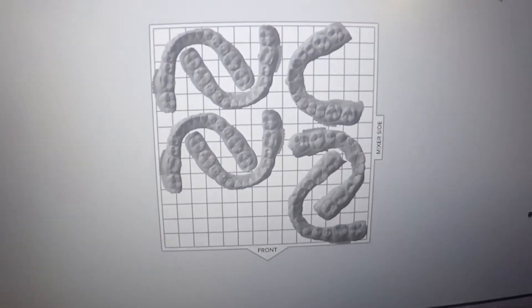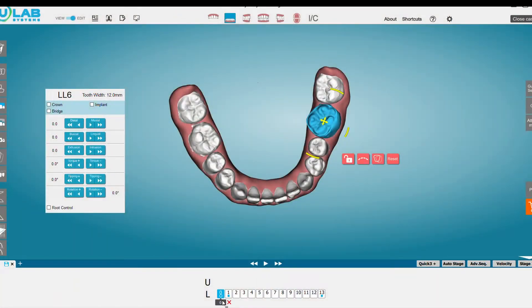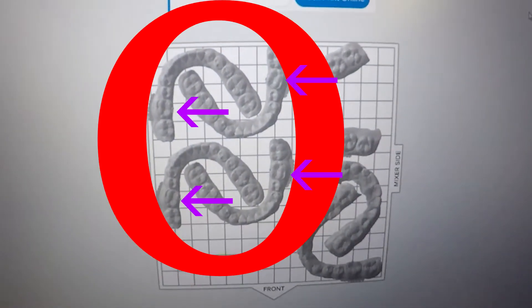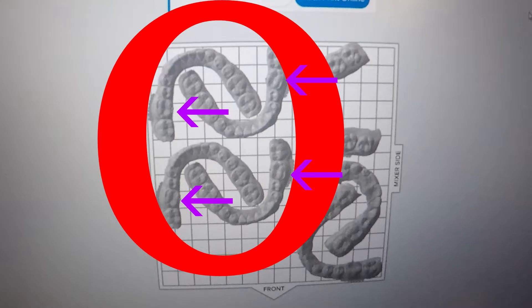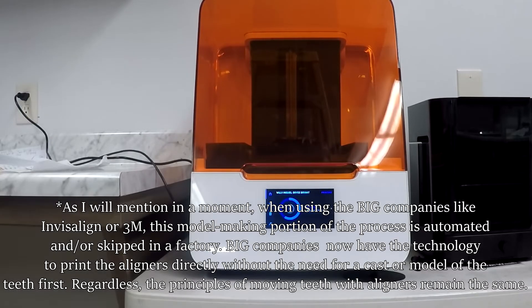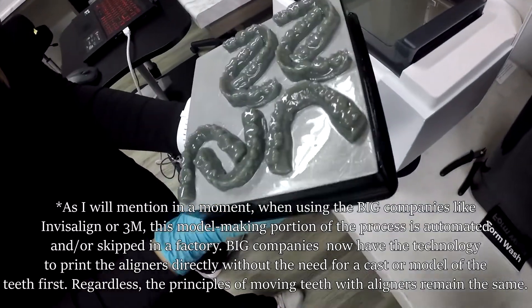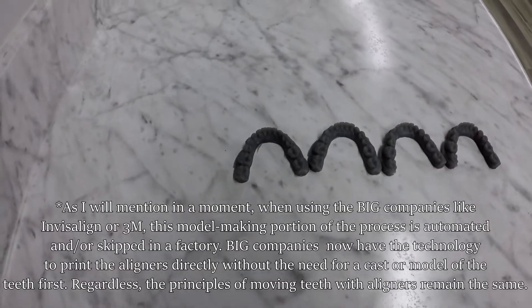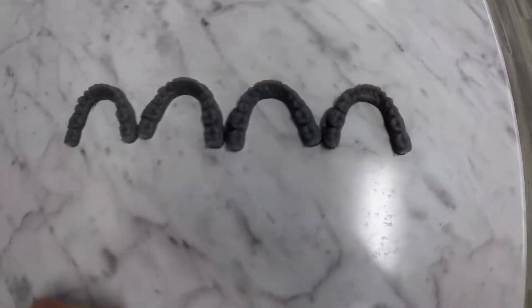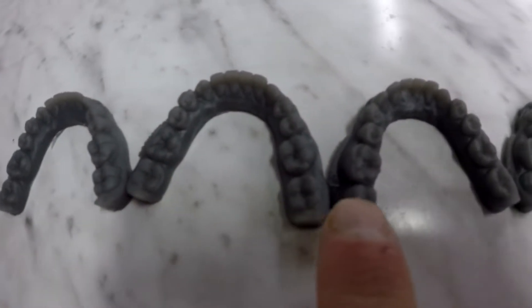Once we have our simulation in order, we have to print 3D models of the teeth for every single one of those stage numbers at the bottom of the screen — that patient had 70, and the very first one I showed you had 13. However, rather than doing all 13 of them, we're going to go 3, 6, 9, 12 — and those casts correspond to these right here. You'll remember that molar I pointed out before, which is going to move sequentially. This is the 3D printer right here — fast-forwarding through it — and when it's done you pull it out and have a bunch of 3D printed models. Laying them out at stages 3, 6, 9, 12, you can see that with each one that molar has moved just a little bit. The reason we can skip ahead like this is that different plastics are a little harder and stiffer, generating a little more movement per aligner.